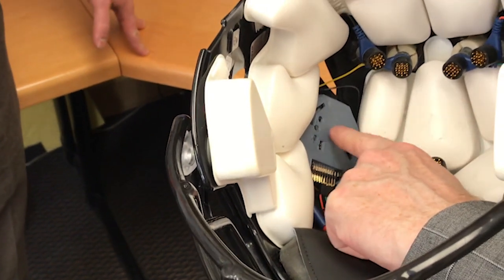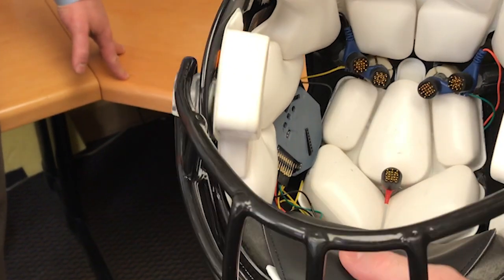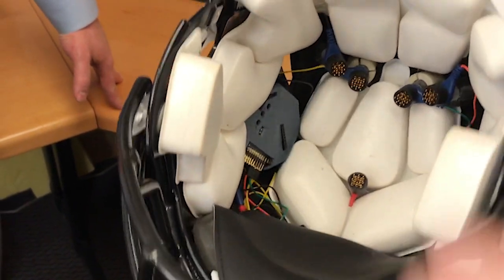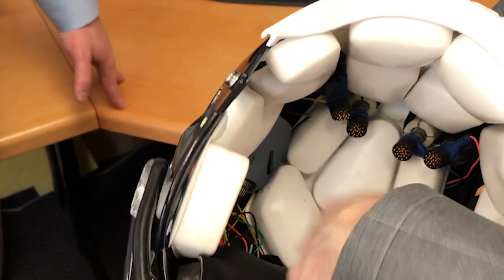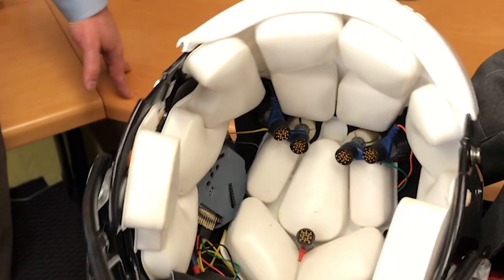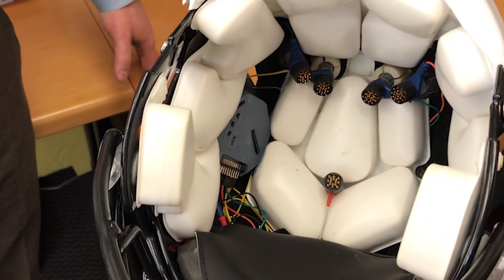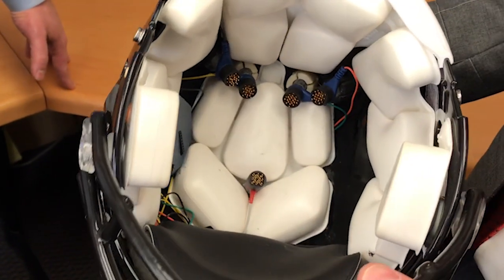This could be under a pad. That's the main circuit board, and the batteries on the inside there, and these are the electrodes, and there's the wire for the electrodes, so there's actually nothing hidden. This is how small it is, and one of our first goals is to miniaturize it even further.